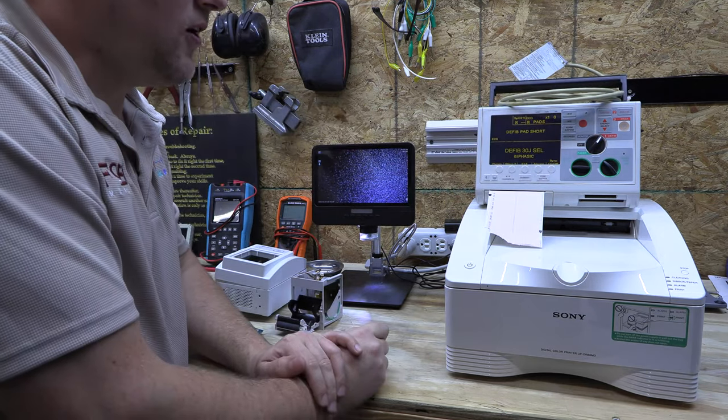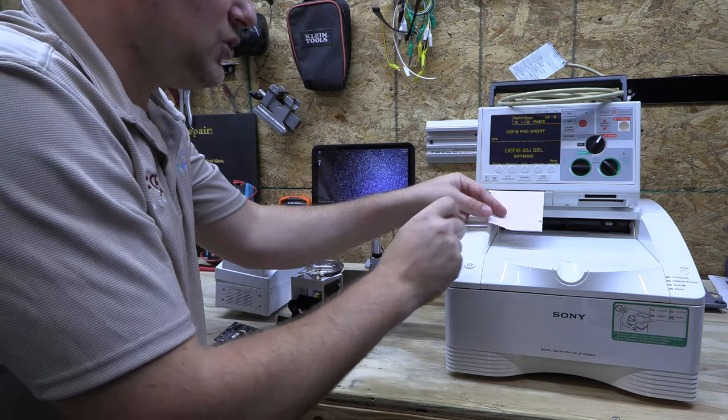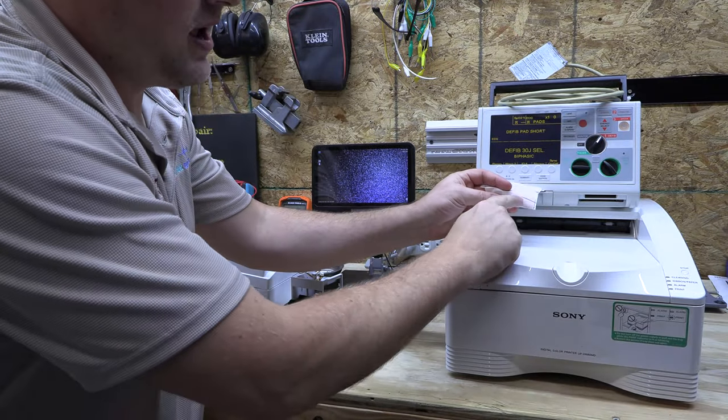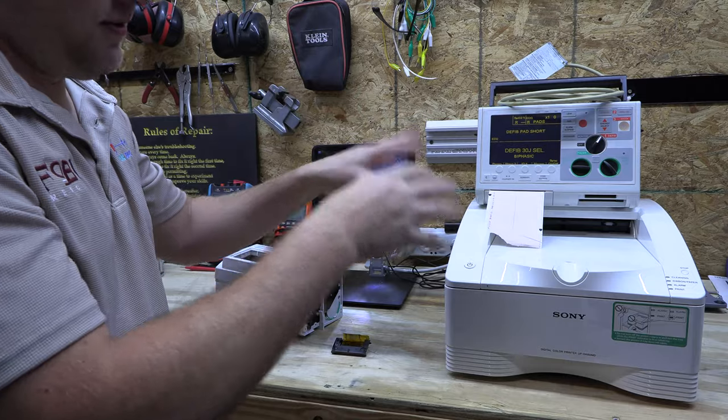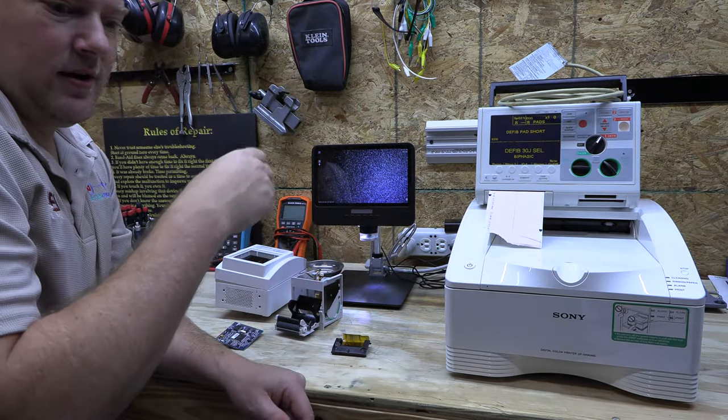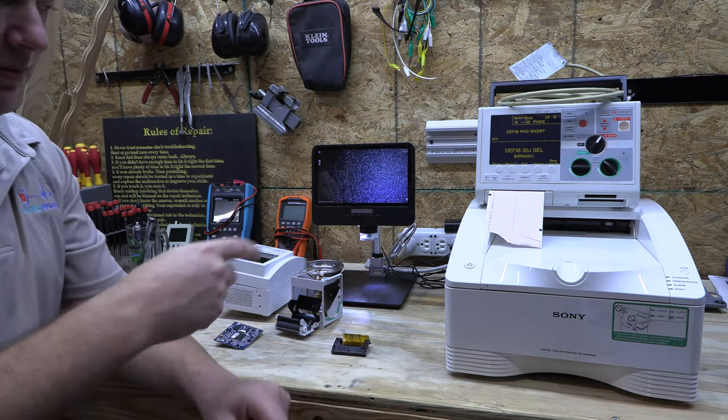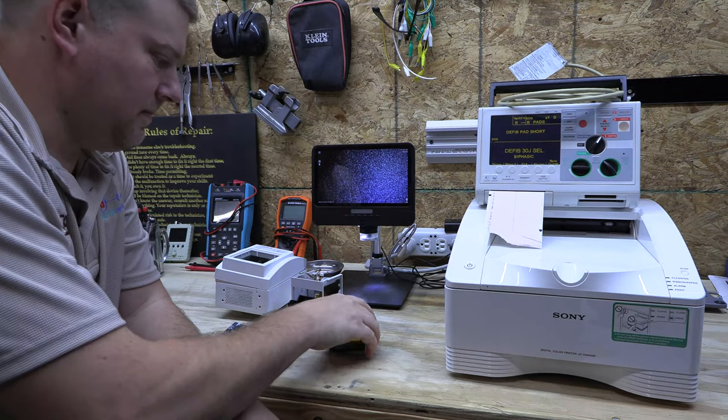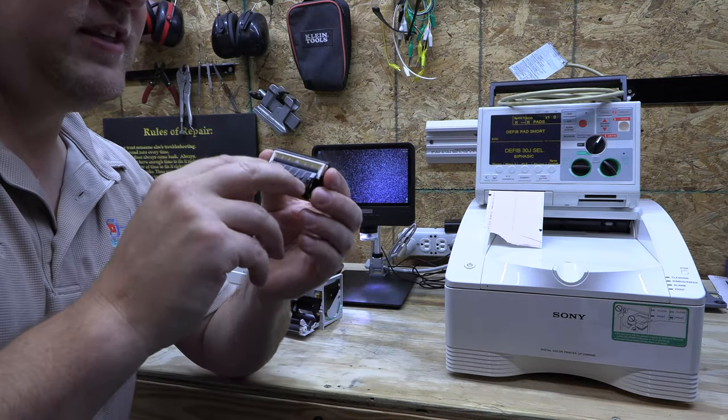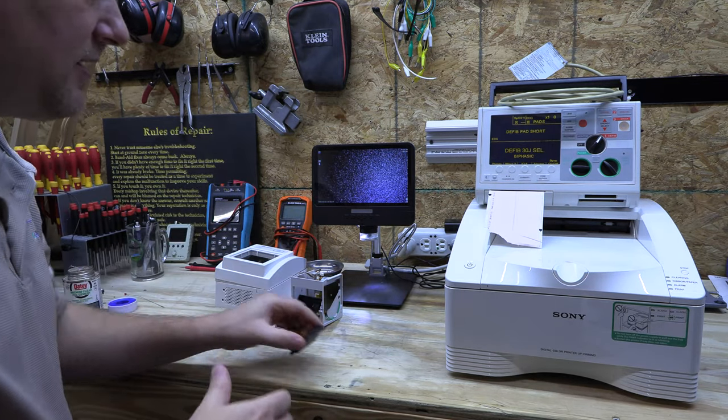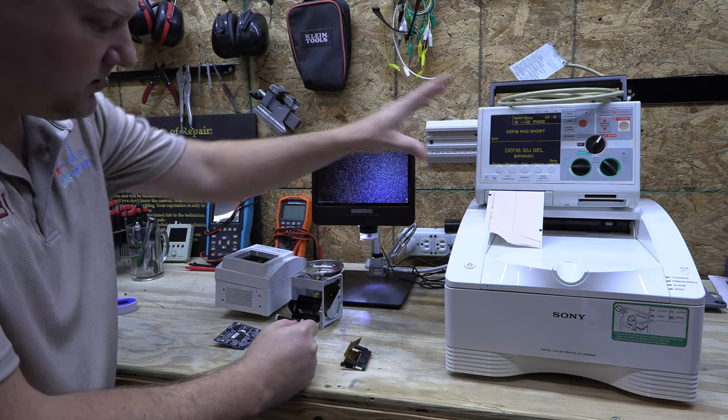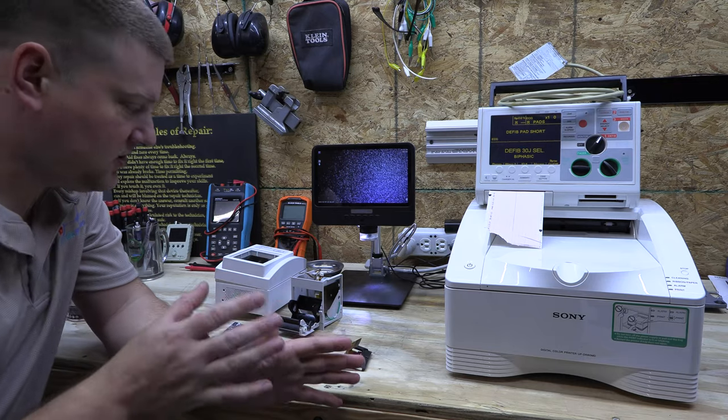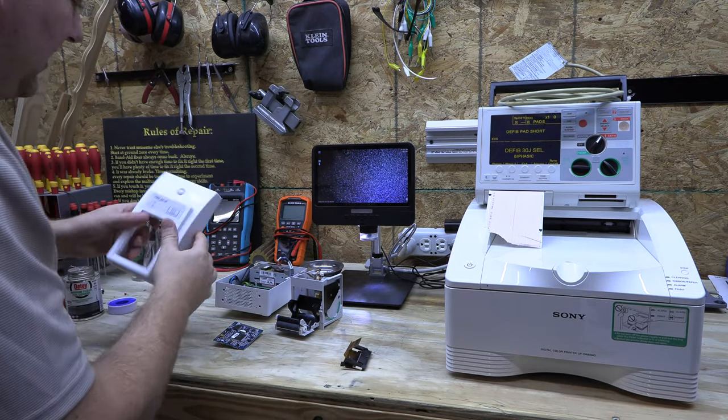Most printers don't have that high of a resolution to begin with, and you're going to see a fine example of that right here on my defib. The way to tell that a printer uses a direct thermal consumable is you can take your fingernail, and if you make a line across the consumable with your fingernail, it's a direct thermal consumable. Now you can also have in the same drawer the thermal transfer consumables, and they look very similar. Drag your fingernail across it. Let's go into the anatomy of one of these printers so you can see what goes on inside them.